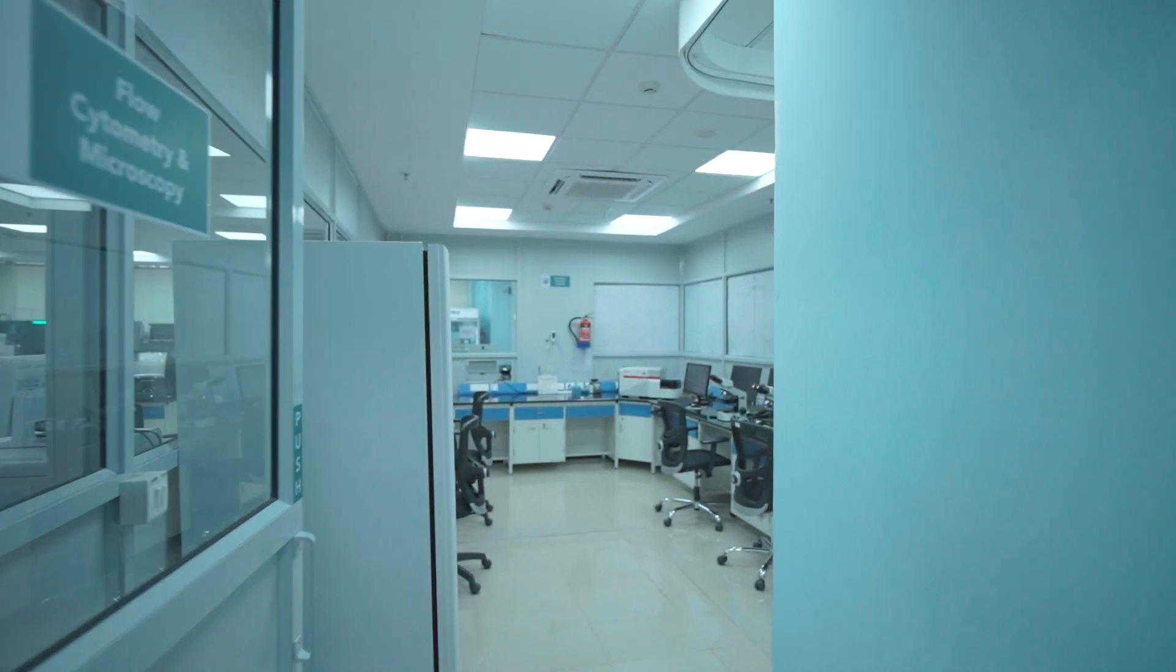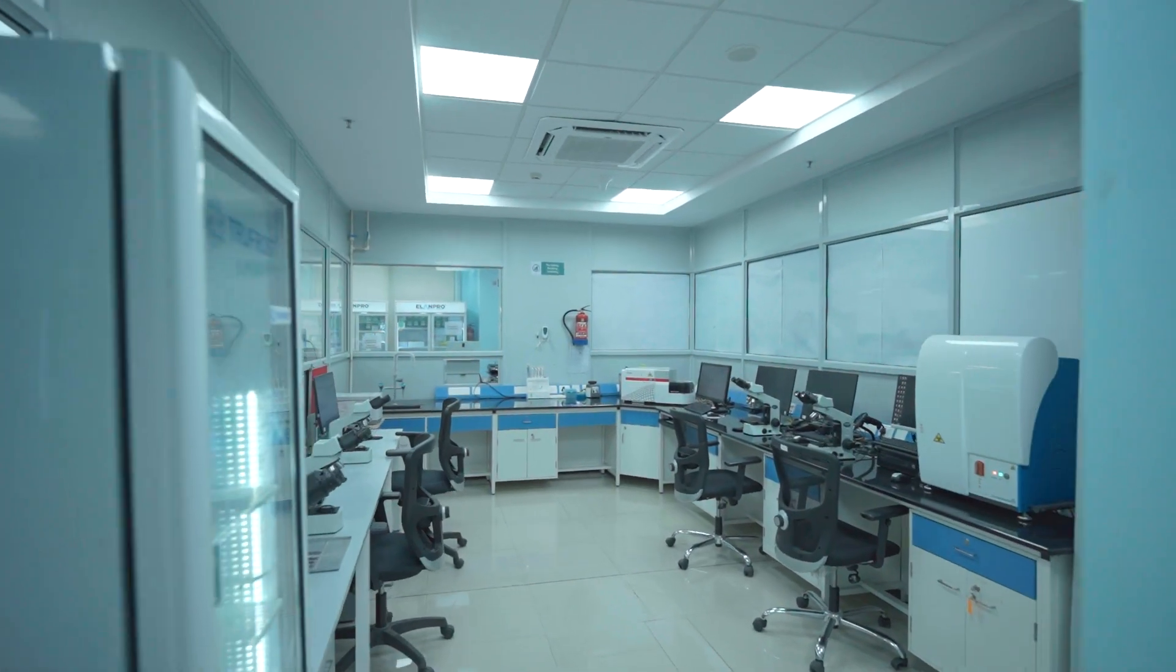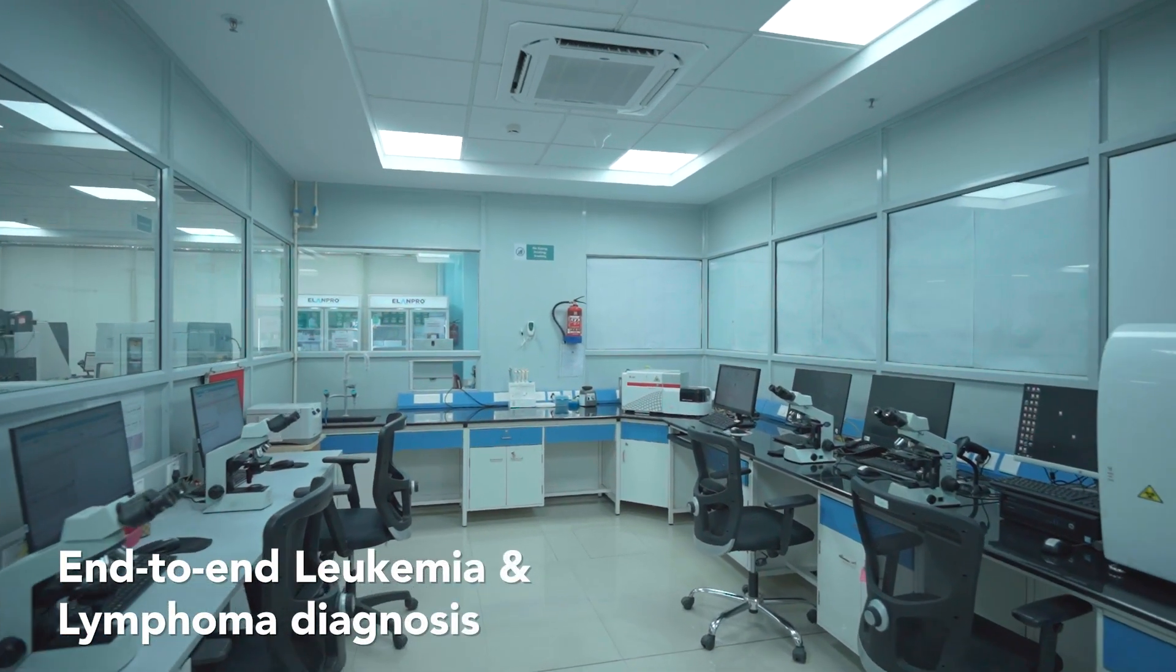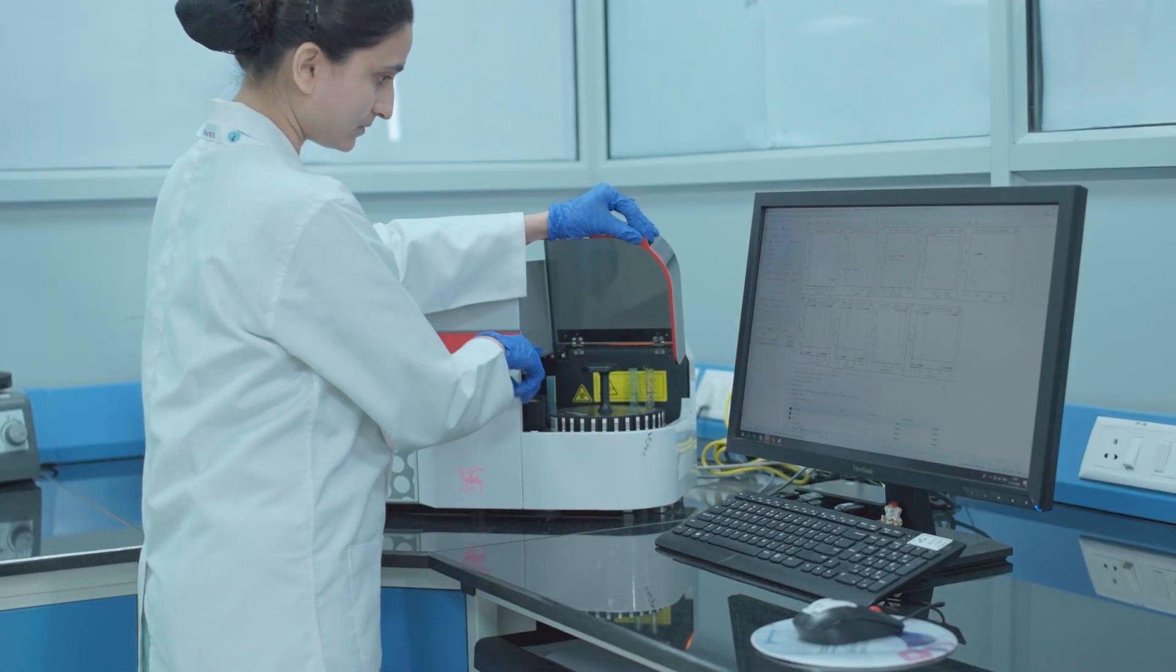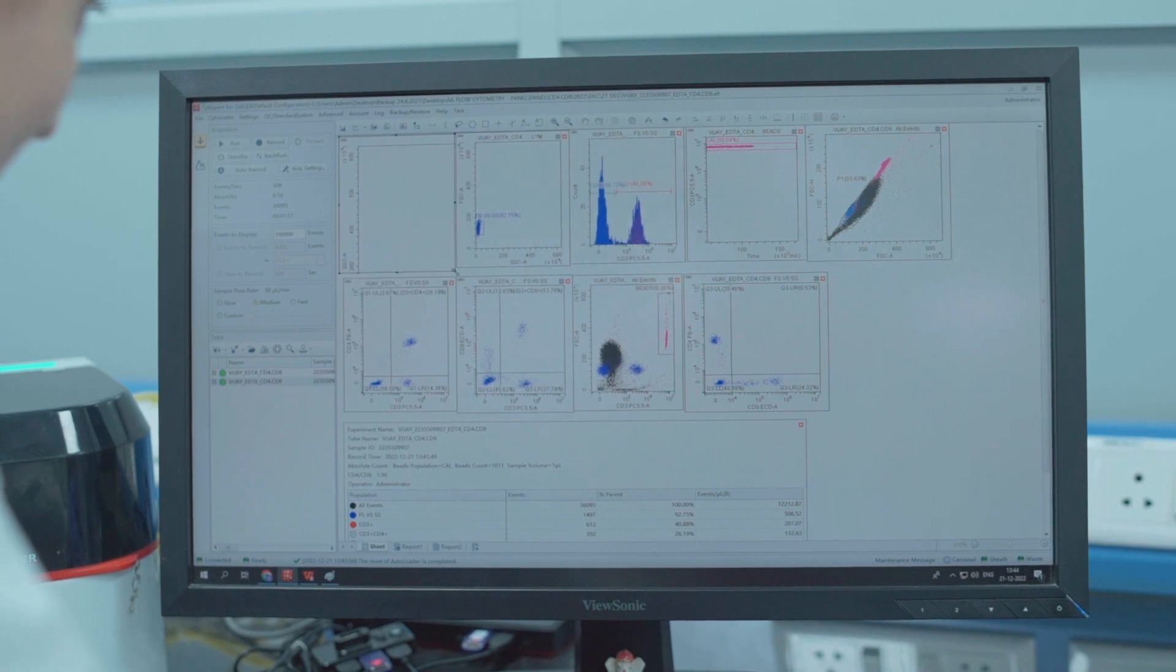In hemato-oncopathology, we provide integrated diagnostic and prognostic testing with use of flow cytometric immunophenotyping, cytogenetics, and molecular testing.